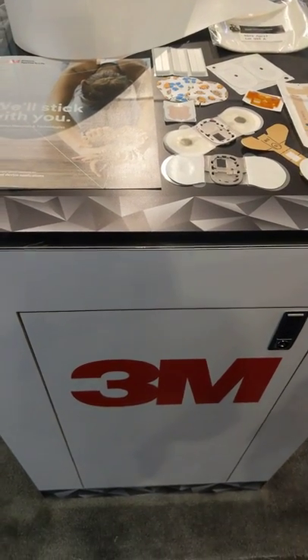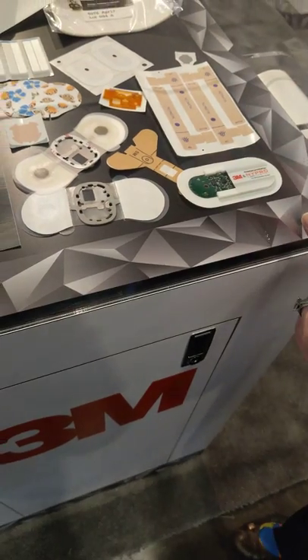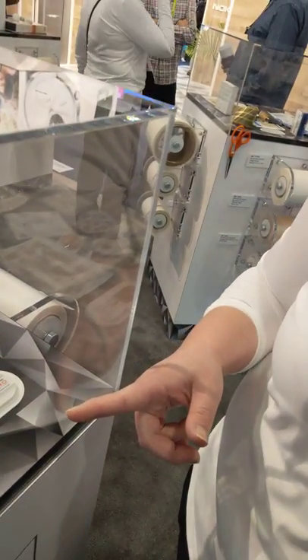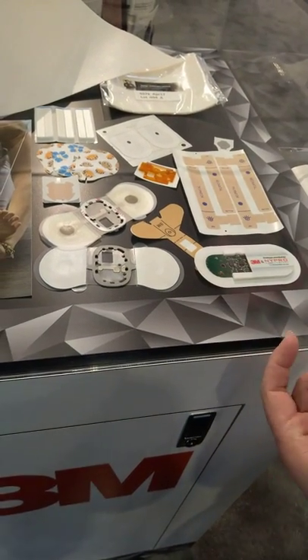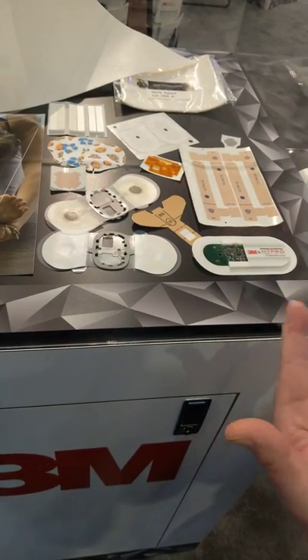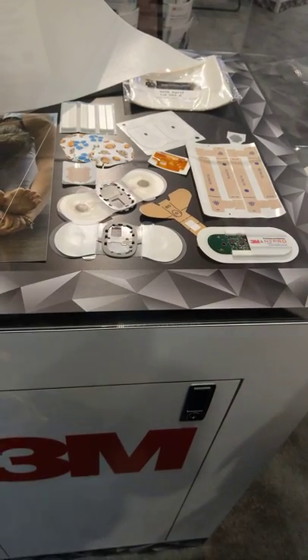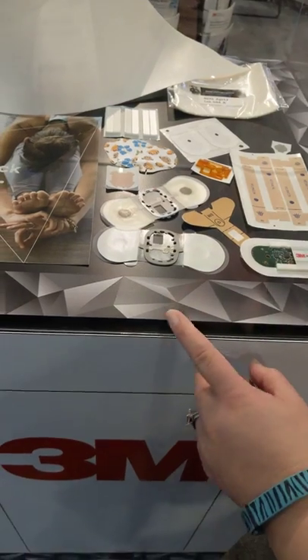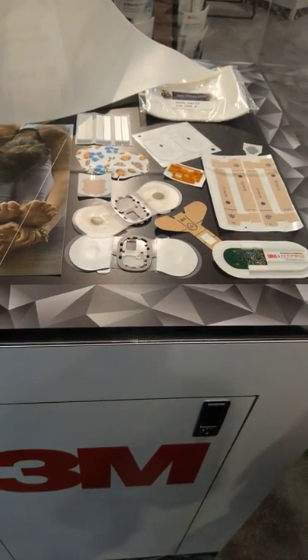Examples of different converted pieces. This one here is a side clip to show you the different components that go into it. You can kind of see what does that look like — there's some foam, there's some circuits, there's some electronic pieces, adhesive to stick to the skin. This is a medical application, just to show you a wearable application.